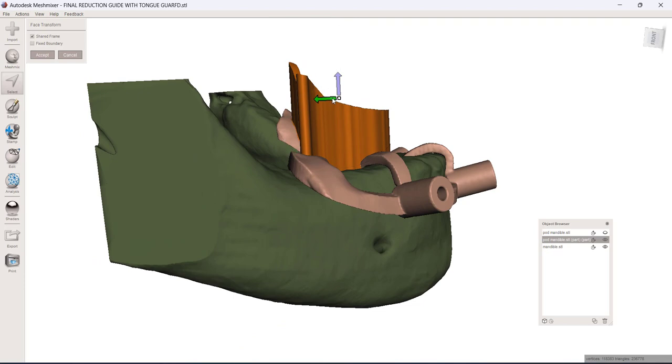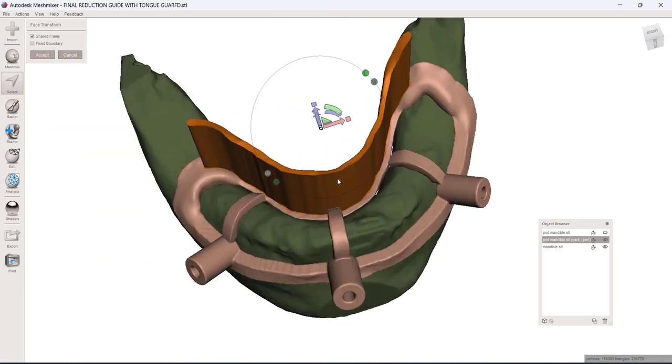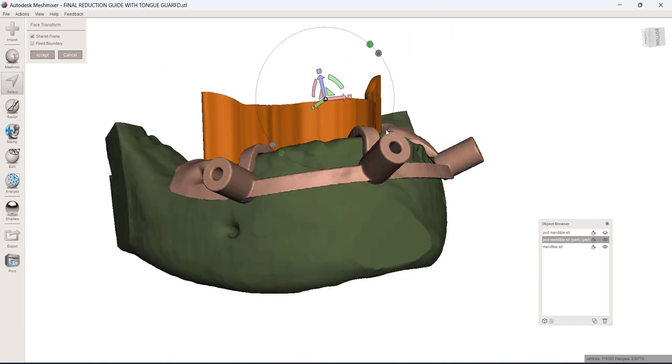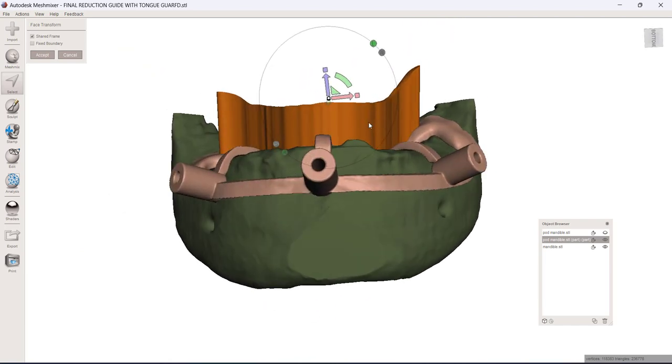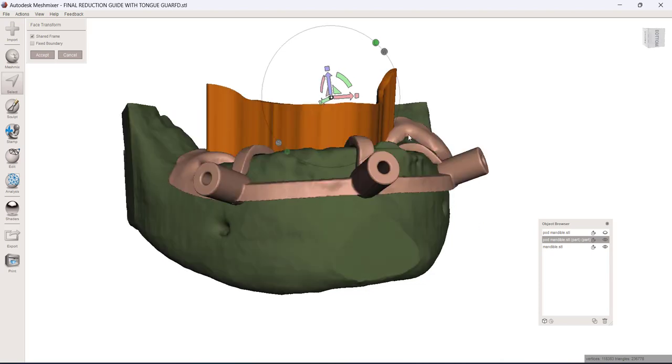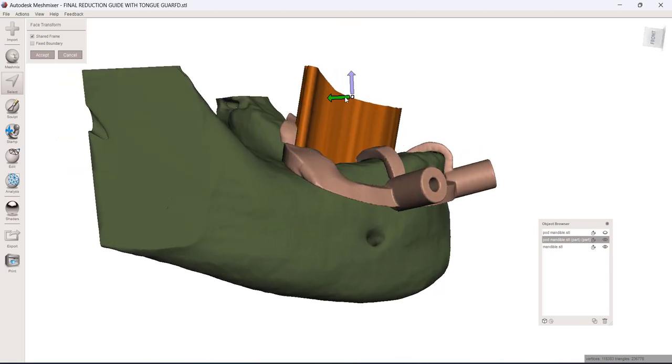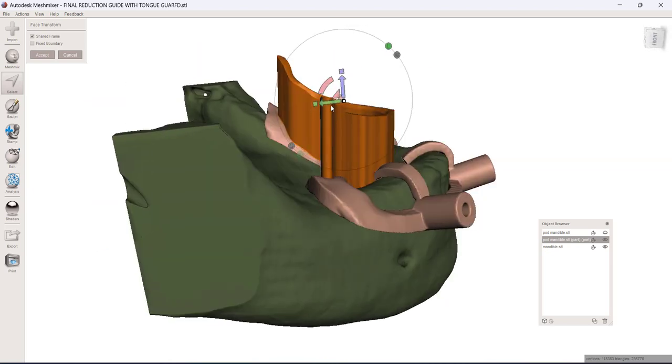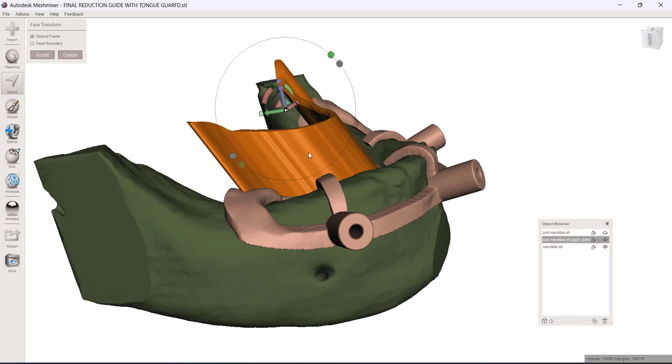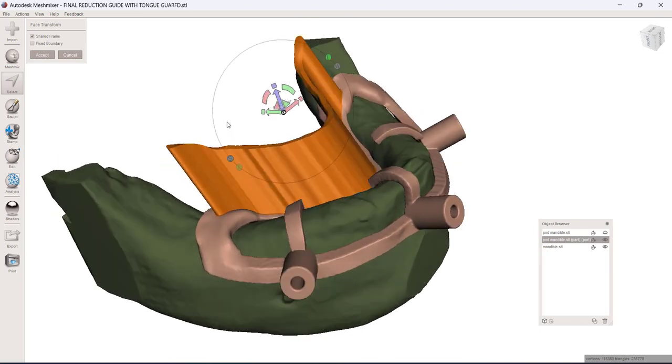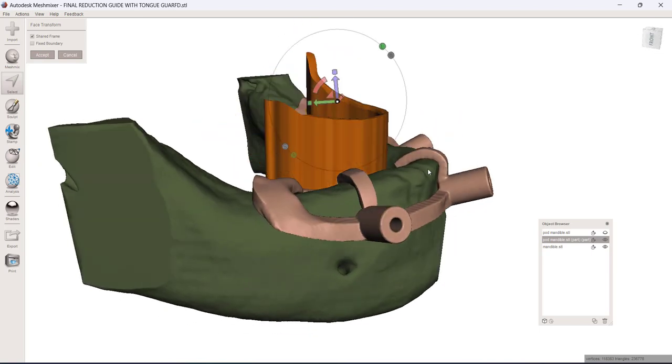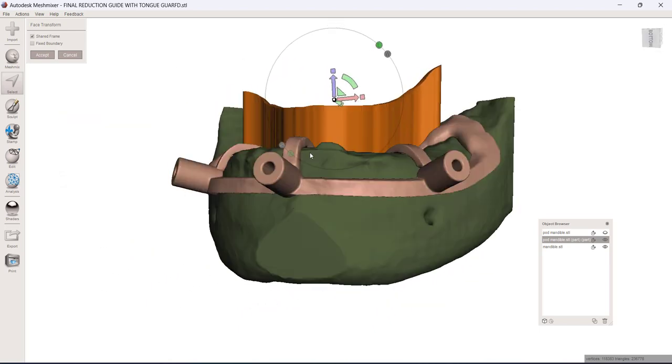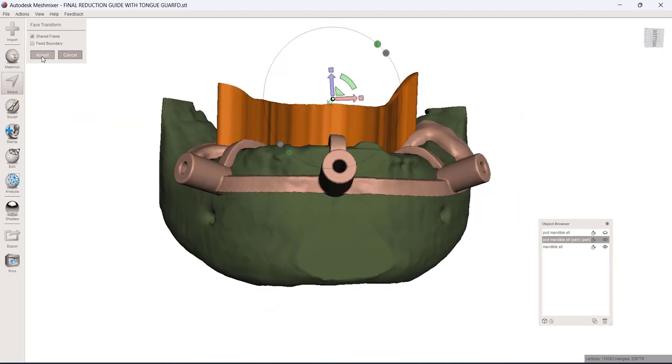If you wanted to bring it more anteriorly, you can, but then you can kind of create a ledge that's harder to get under as you're doing your reduction with the big burr. I want it mostly straight up and down, maybe just a little slanting forward. You don't want to take this thing way back here and now you've got nowhere for the tongue to go and patient feels like they're suffocated. So I'll control Z that we'll go with something about like this.